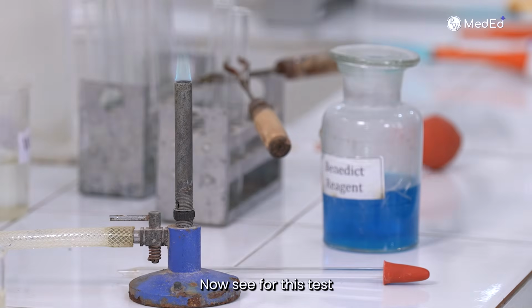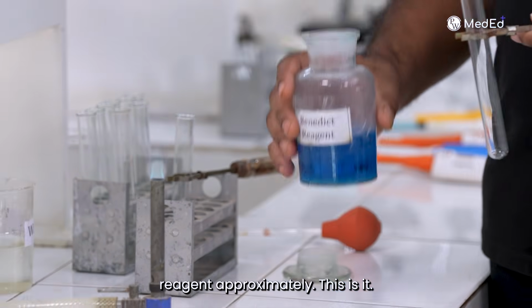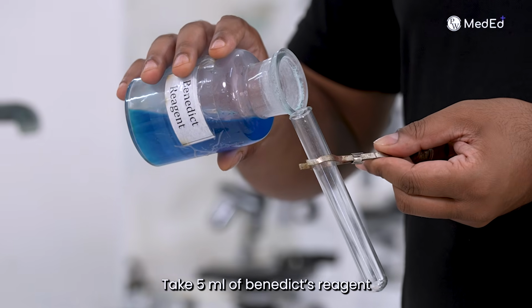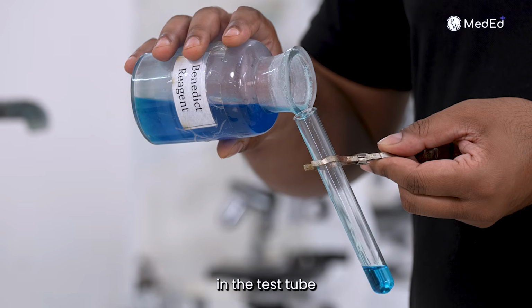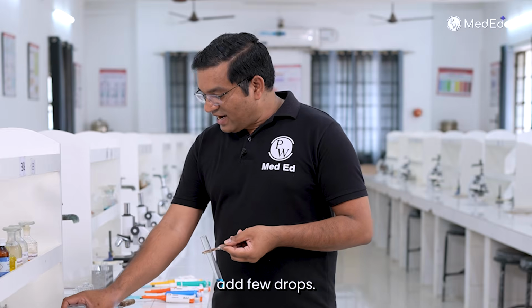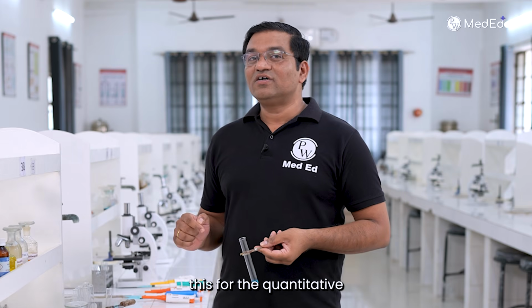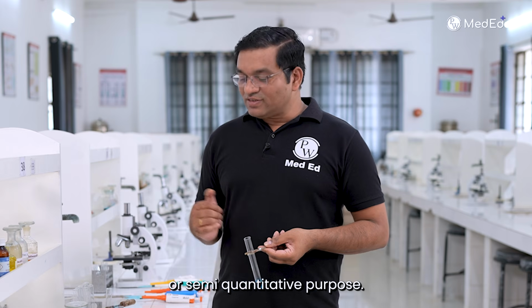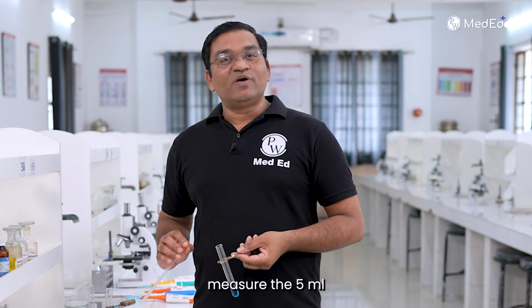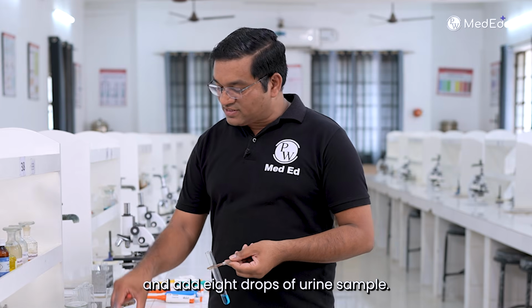Now see, for this test we take approximately 5 ml of Benedict reagent in the test tube, and to this add a few drops of urine. If you are doing this for the quantitative or semi-quantitative purpose, just measure the 5 ml of the Benedict reagent and add 8 drops of urine sample.